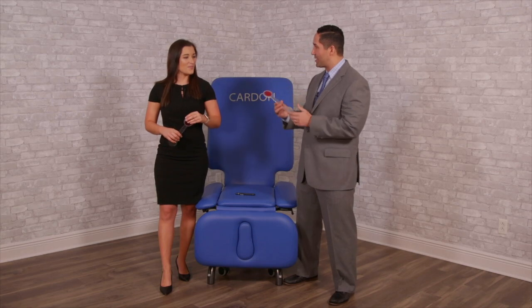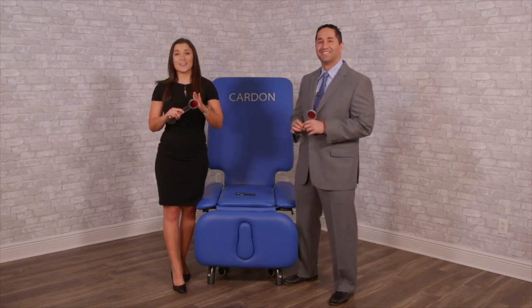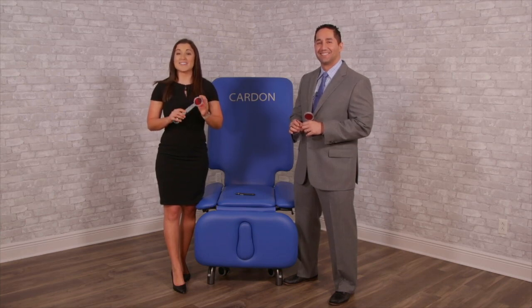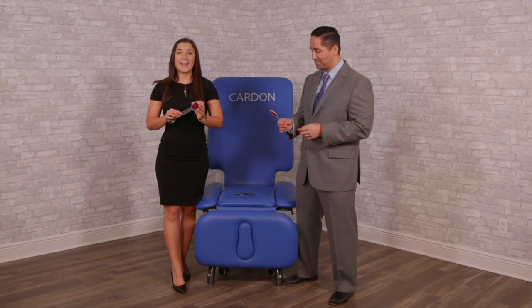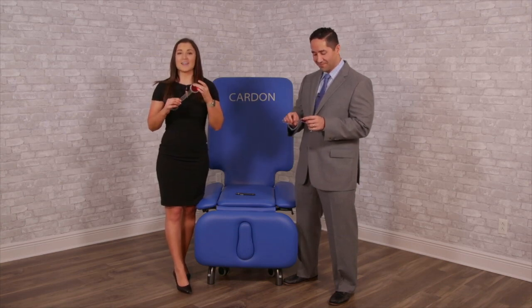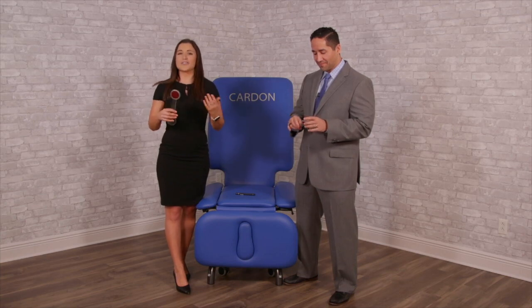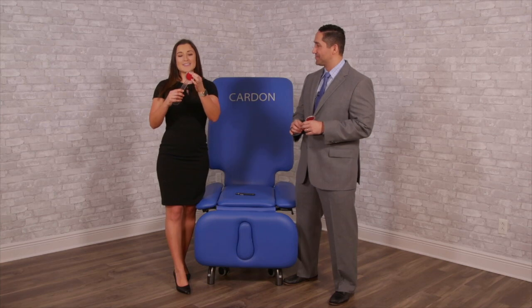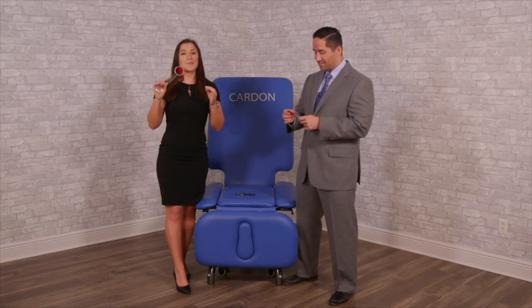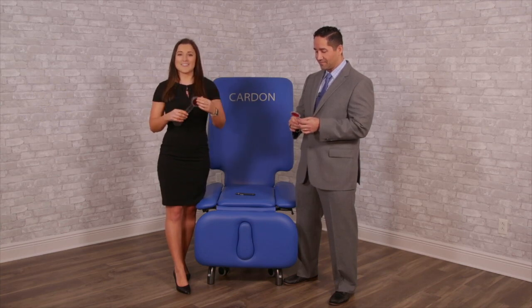The Maddox rod was created in 1890 by an English surgeon and ophthalmologist E.E. Maddox, who was known as an expert in the field of phorias and eye deviations. It's a colored tinted glass — reds and greens are the common ones — made of different cylinders lined up about three millimeters apart. When you bring it up to the eye and shine a light through it, it creates a dissimilar image, which is good for clinical examination.